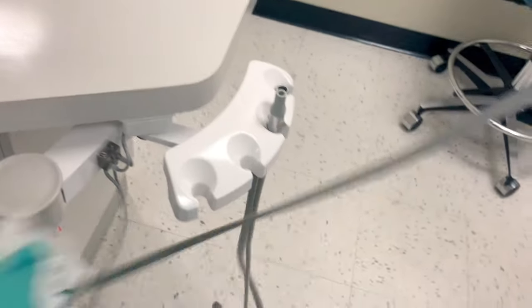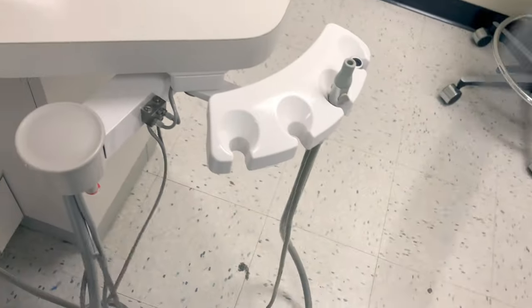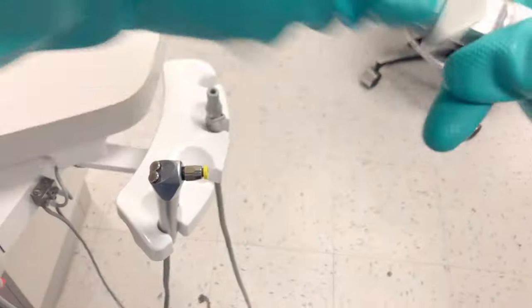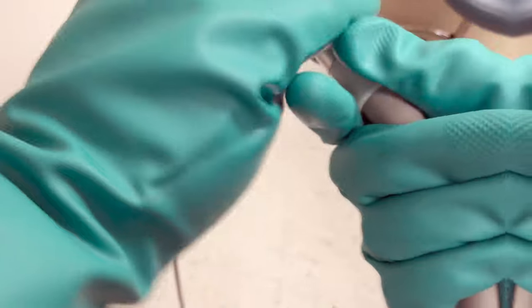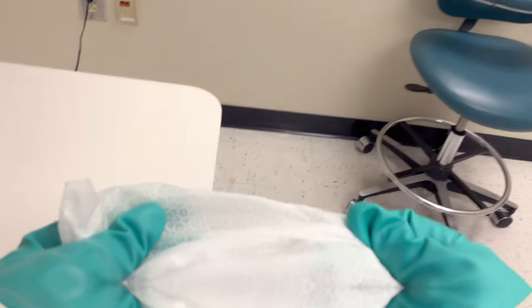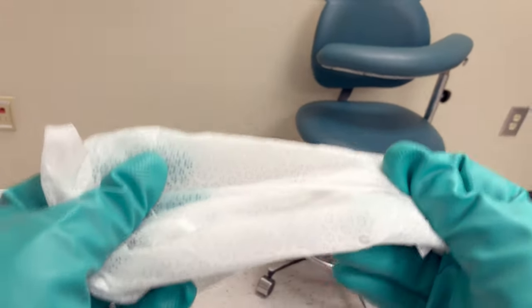Take the items out of the holster, wipe the holster down, wipe the item as well as the hose, and hang it back up. Get around the levers and the buttons. Go partway down your hose, get the holster, hang it back up. Go around the entire room cleaning all surfaces with this towelette.